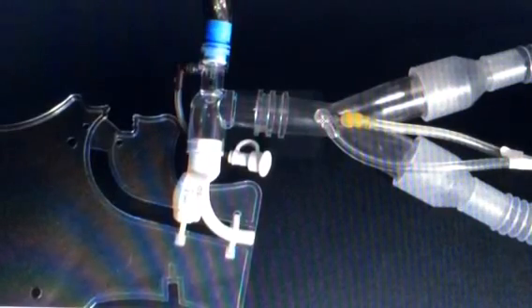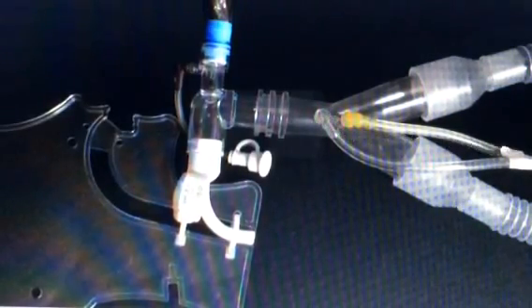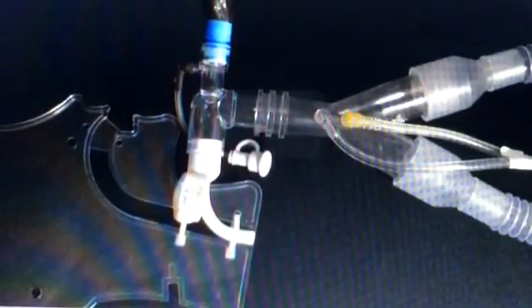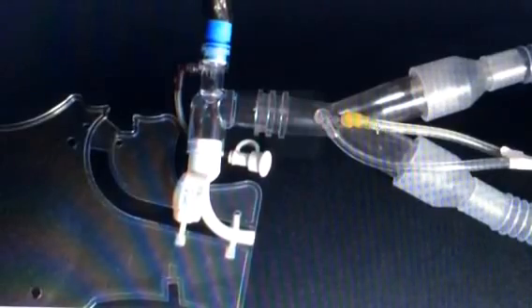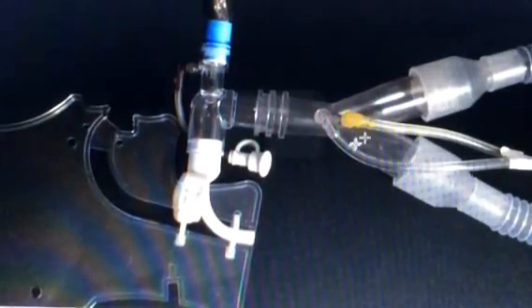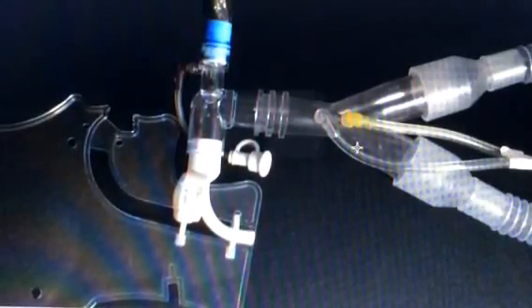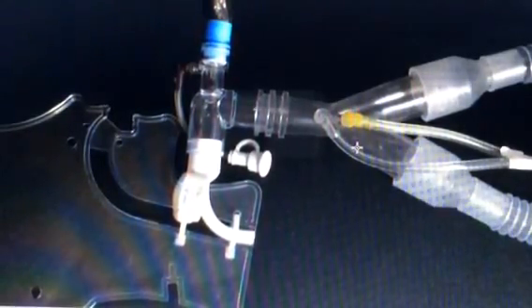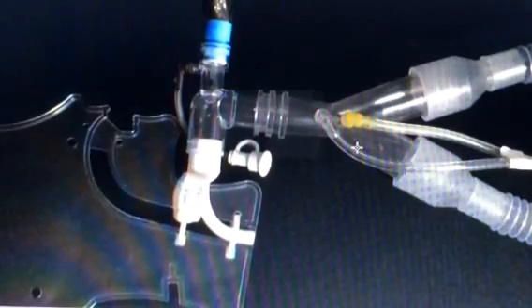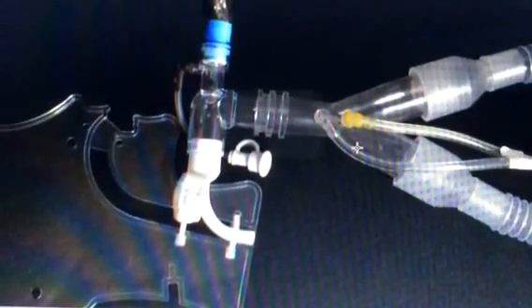To check for water in the tubing, start here at the Sense Tubes and scan all the way backward, all the way to the vent. But usually it will start alarming when that droplet of water is right here, because it doesn't take much and it's just entered the tubing. If you do have a droplet of water in that tubing, it's very simple to get it out. There is a built-in way to get that water out of the Sense Tubes.